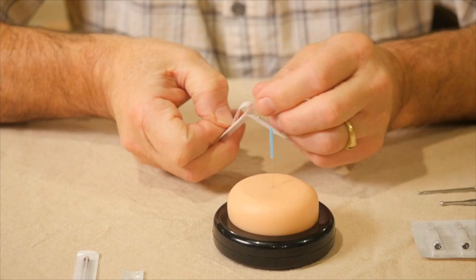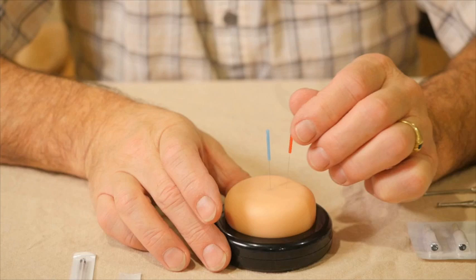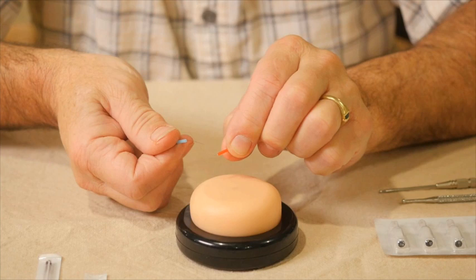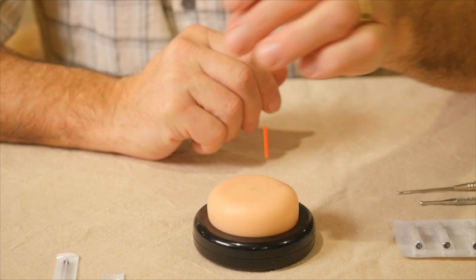These are the same length — a 30mm or one-inch needle. After breaking the attachment and inserting into the practice pad, these needles look similar to one another. However, the red number 1 is thinner. When we push them against one another, you can see how much more the red one flexes than the blue one. The red one always flexes much more — it's much thinner. It may be difficult to see on video, but the difference becomes clearer as we move to the next size.